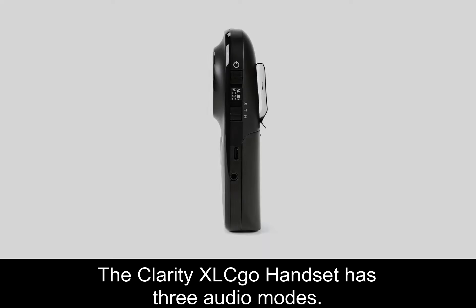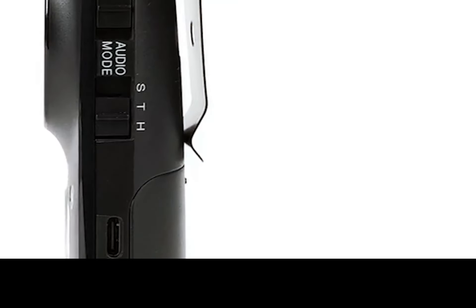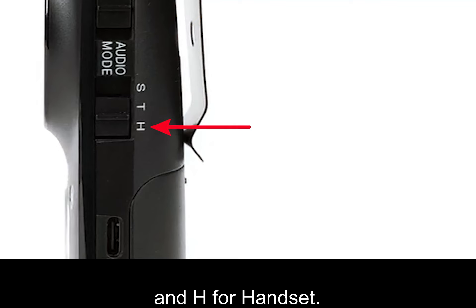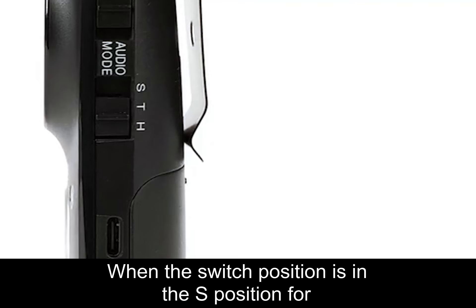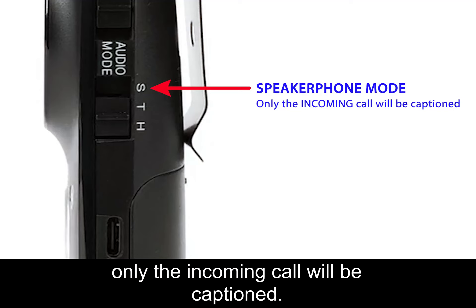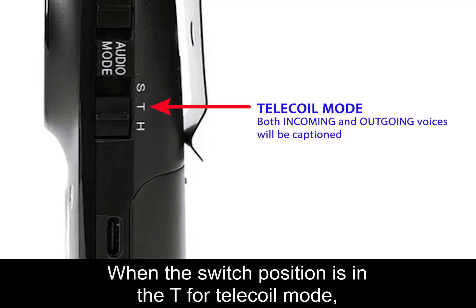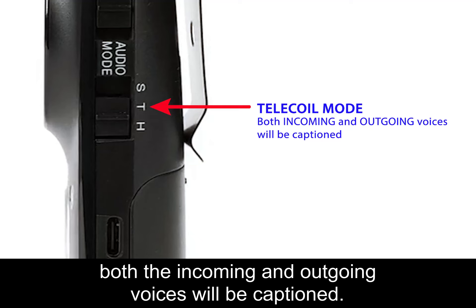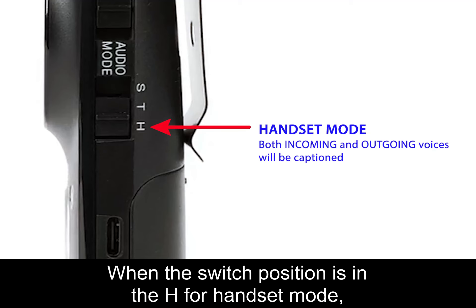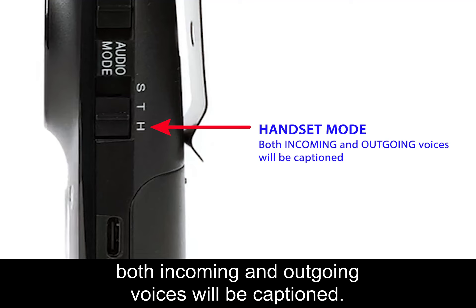The Clarity XLC Go handset has three audio modes: S for speakerphone, T for telecoil, and H for handset. When the switch position is in the S position for speakerphone mode, only the incoming call will be captioned. When in T for telecoil mode, or H for handset mode, both the incoming and outgoing voices will be captioned.